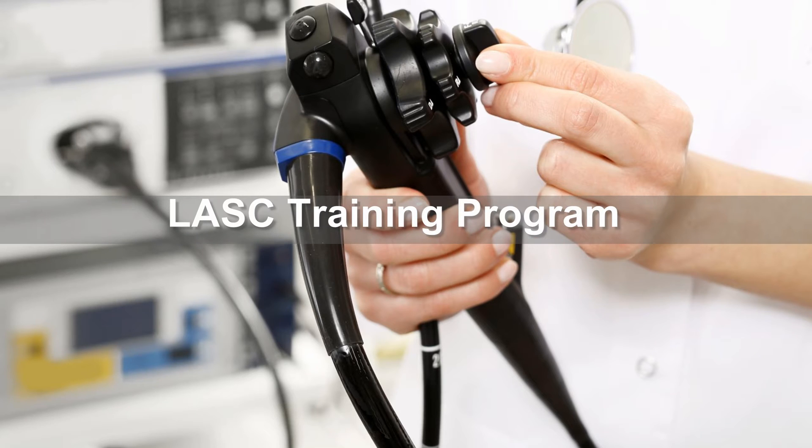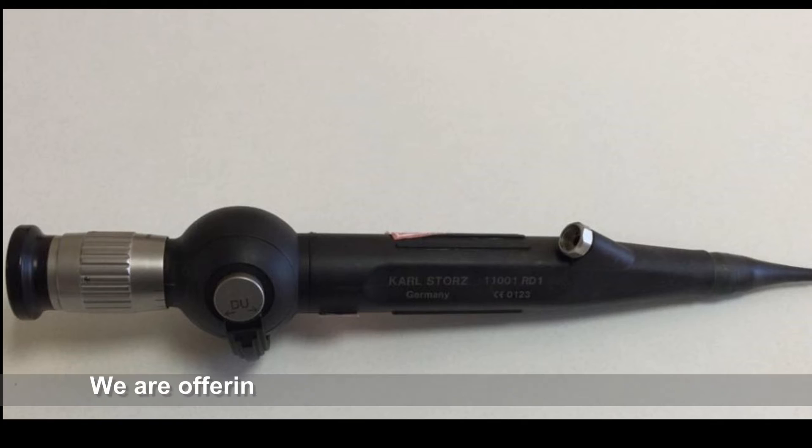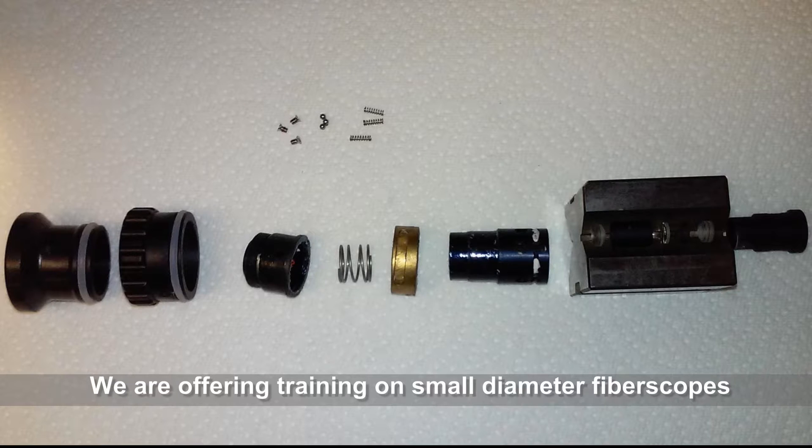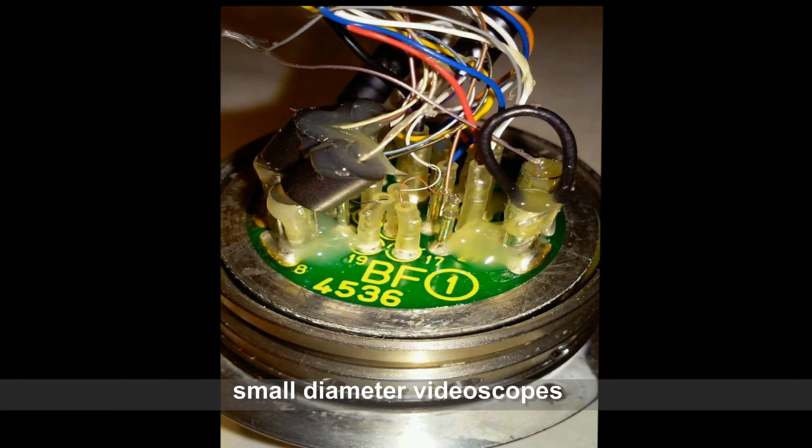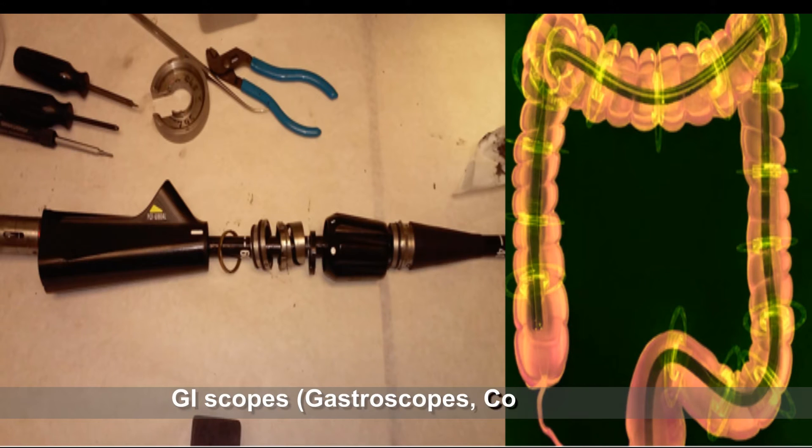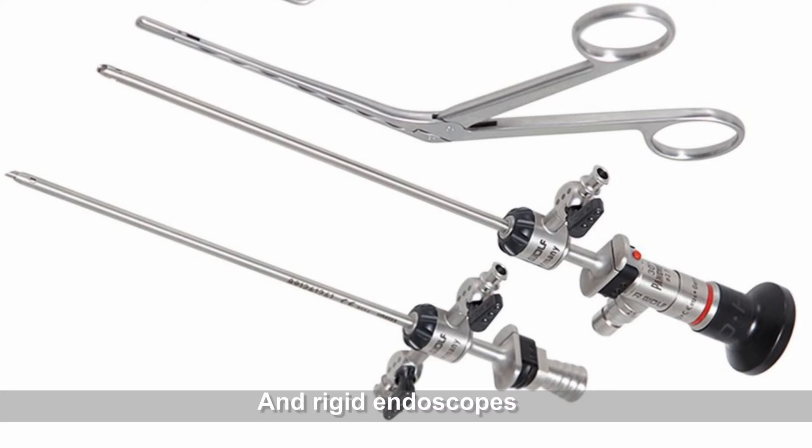Let me introduce you to our training program. We are offering training on small diameter fiber scopes, small diameter video scopes, GI scopes, and rigid endoscopes.